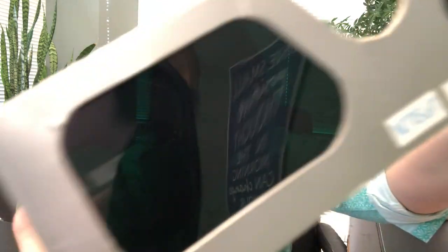What about exotropia where the eyes are going out? Well, this filter color — it still is green but it's like a darker green. And so this color is actually utilized for someone who has that exotropia, or the eyes turned out.